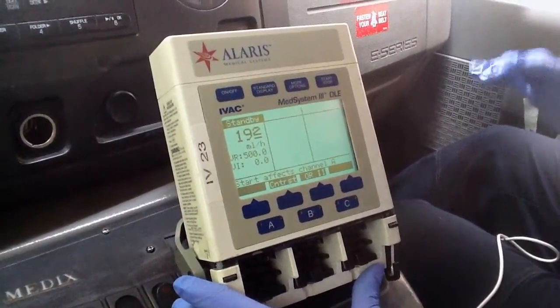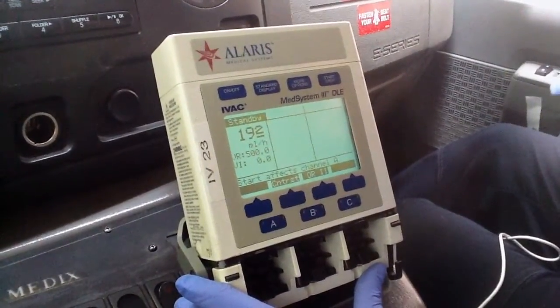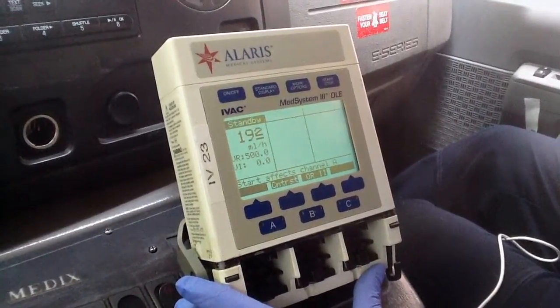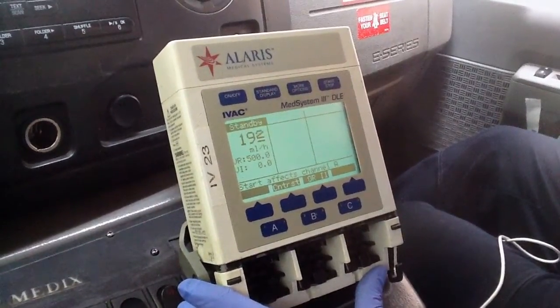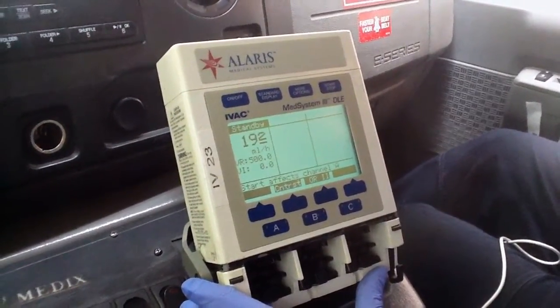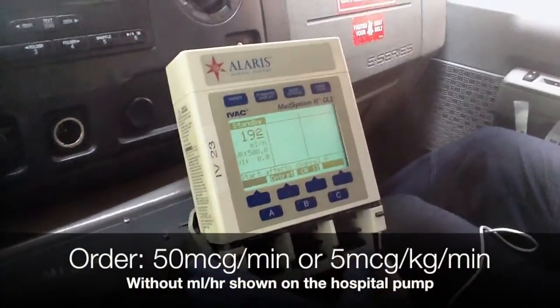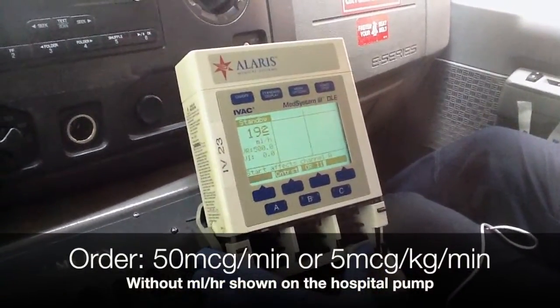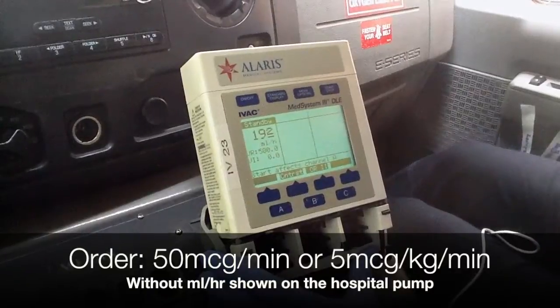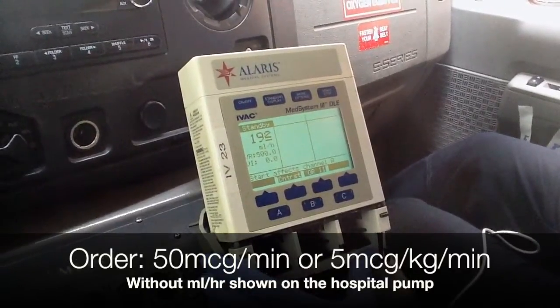In this presentation I'm going to show you exactly how to set up the calculator mode, because you may arrive at a facility where it will not show mLs per hour. It will have a drug order like 50 micrograms a minute or five micrograms per kilogram per minute, so you'll need to know how to do that.